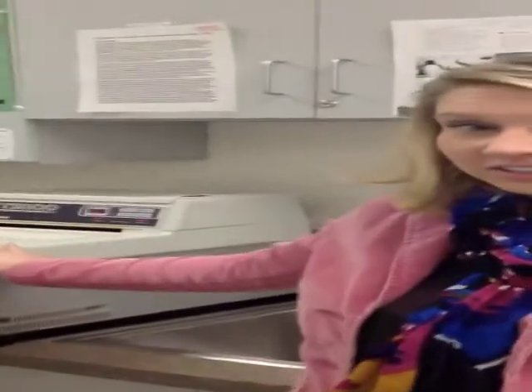We are going to go over the radiology assistant checklist and the clinical assistant checklist today. First thing you're going to want to do as the RA is come in 15 minutes prior to clinic time, and the very first thing you want to do is turn on the automatic processor. Both the automatic processor, the daylight processor, flip it on, and the darkroom processor.